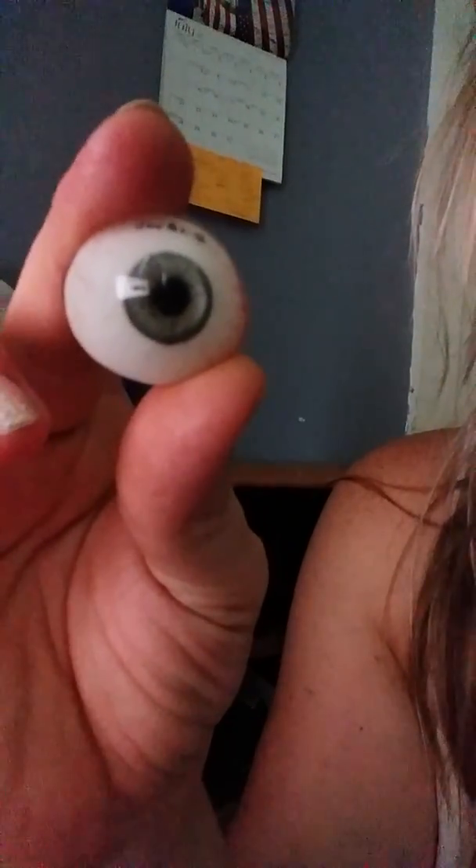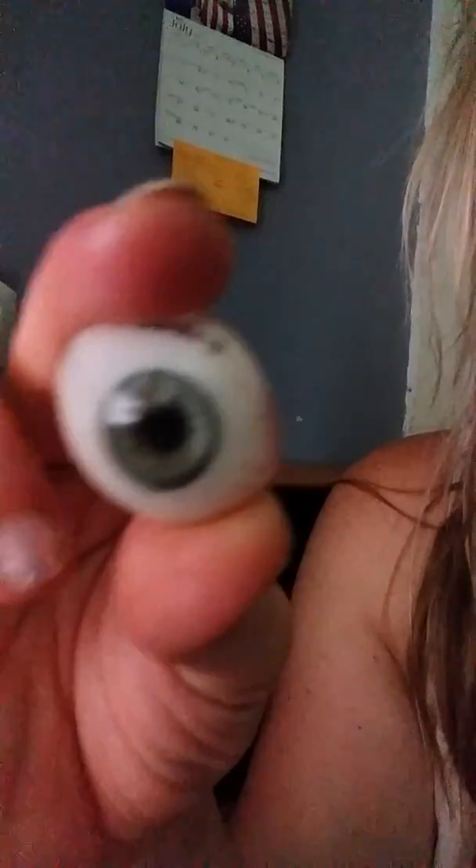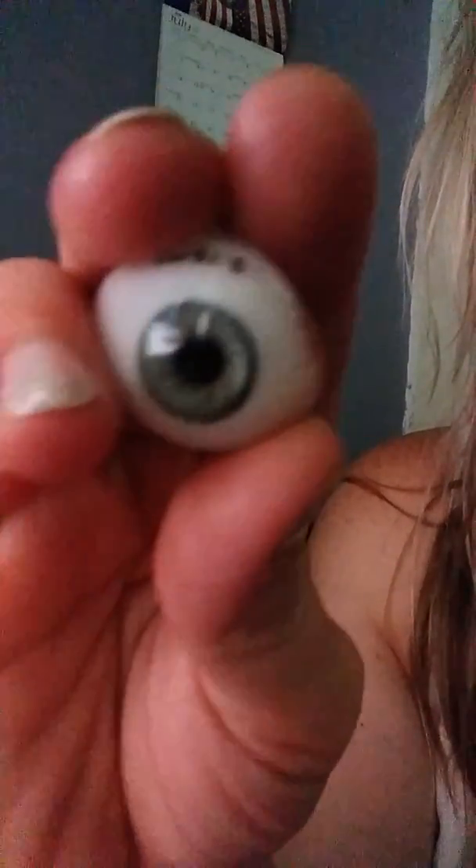It's a little darker, but then in the light, this does not change. This is always dilated. Obviously your real eye will be changing when you go from light to dark, but this will always stay dilated.